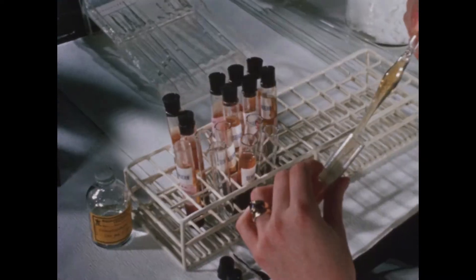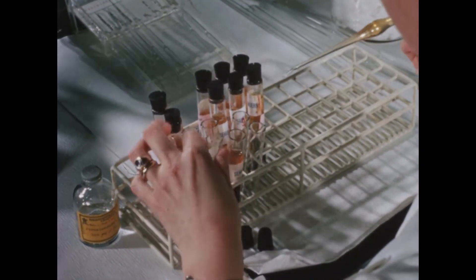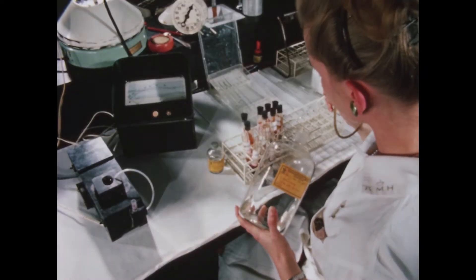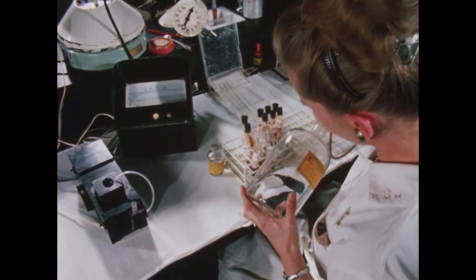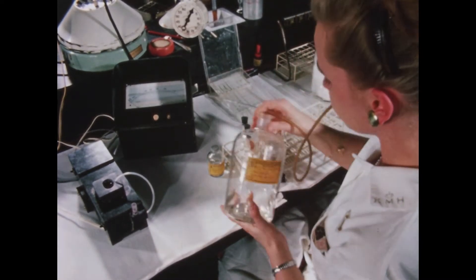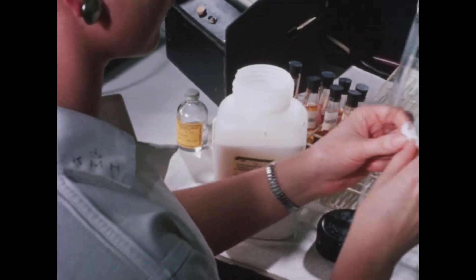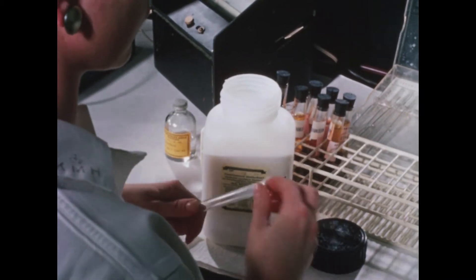Chromatographic methods, which aim at separating various often closely related substances, are coming into increasing use in clinical chemistry. An example of a method utilizing the chromatographic principle is analysis of transferrin, the iron binding protein in the serum. Transferrin is often determined together with serum iron in patients with anemia.